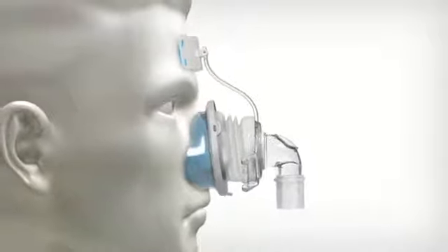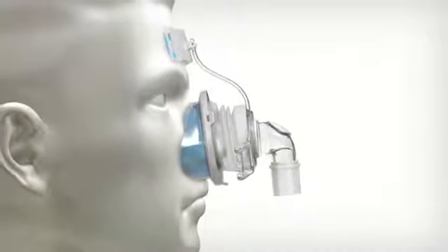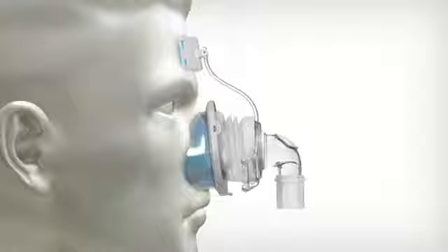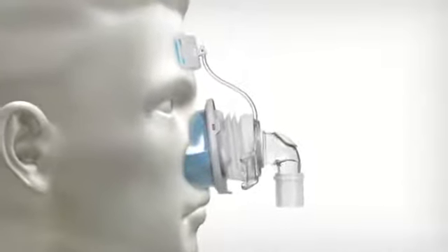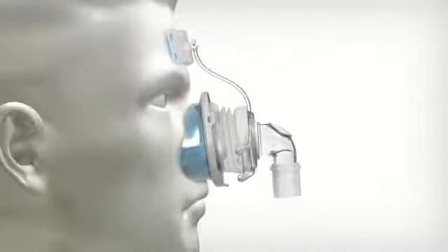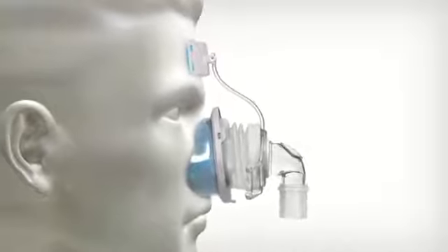First, there's the Freeform Spring, which gives patients the ability to move in any direction. This spring helps patients get a better night's sleep by providing an exceptionally flexible and reliable seal.